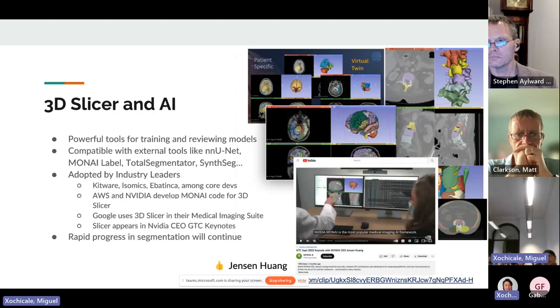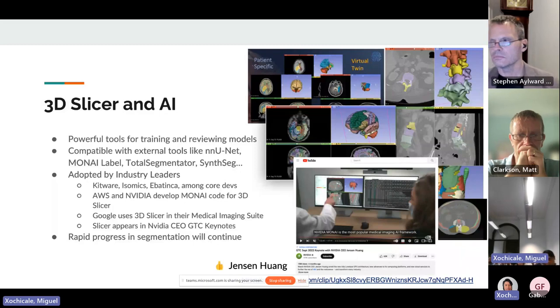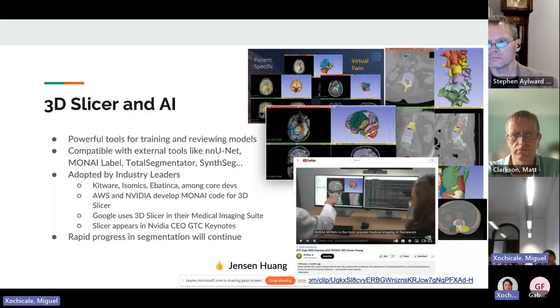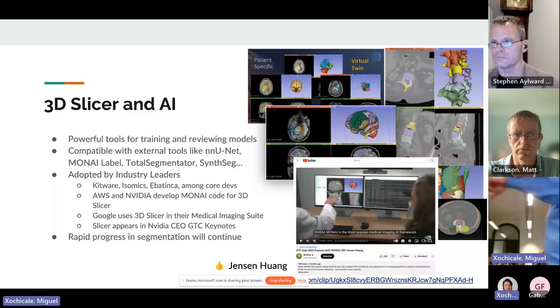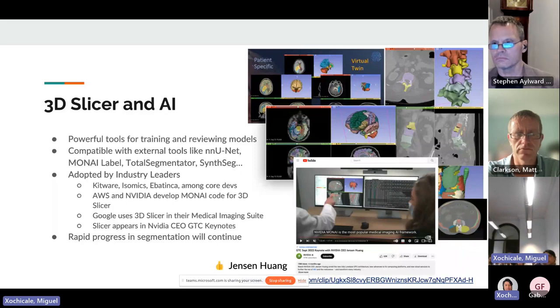The biggest news in the last couple of years is that AI is finally working — segmentation is delivering really useful results. We now have a productive environment where you can use Slicer for all traditional medical imaging tasks: processing DICOM data, handling segmentations, and using tools like MonaiLabel and nnU-Net to do training. Usually training takes days or weeks offline, but the results you can see inside Slicer, and it's now to the point where you can do active learning: see the results, edit them, retrain. We're seeing remarkable results — complicated spine segmentation where bones are touching is basically solved. We even got a shout-out from the CEO of NVIDIA using Slicer in his keynotes.